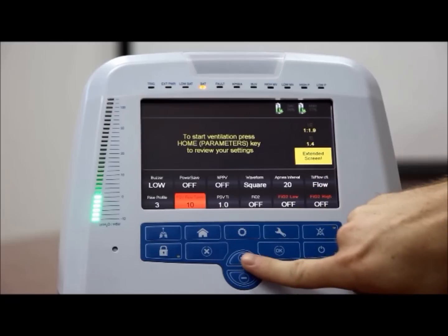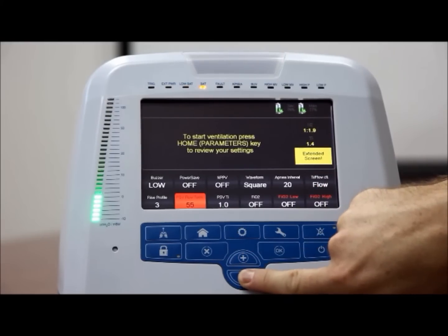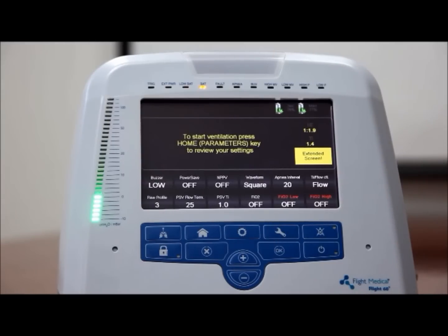To set the flow threshold, on the ventilator front panel, press the extended button. Tap the PSV flow term control button. Press the plus and minus buttons to increase and decrease the threshold in steps of 5 until you reach the desired flow threshold.